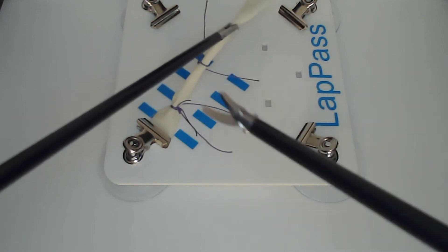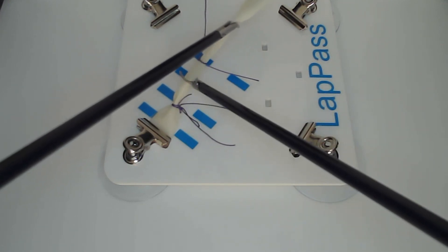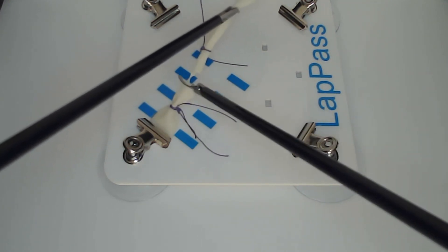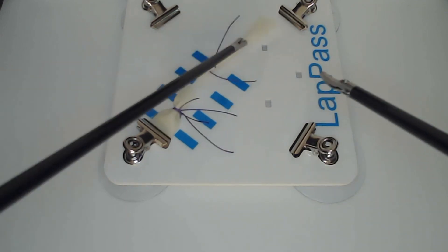Once you're happy with your secured knots, it's important to cut in between, and this forms the end of the task.